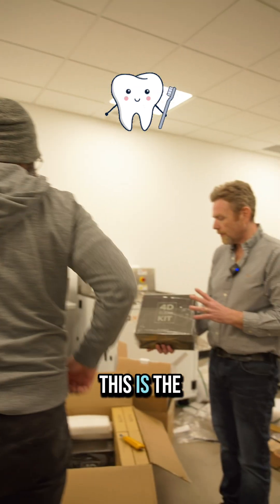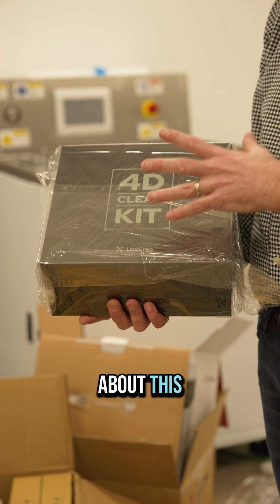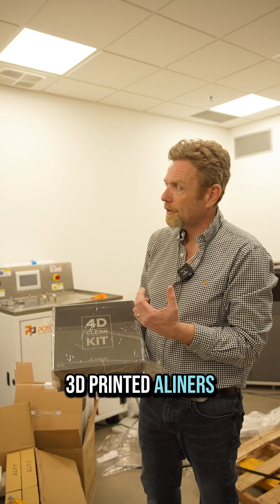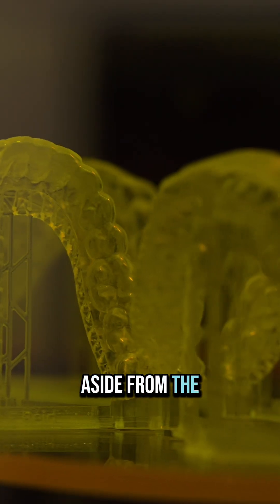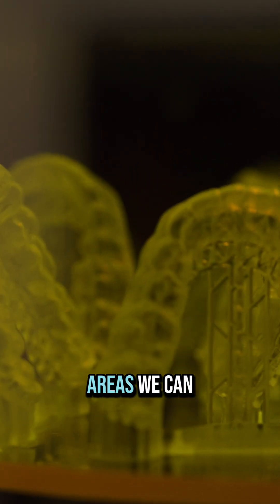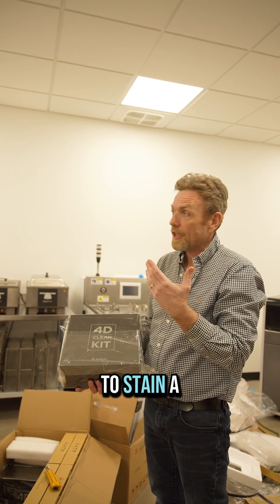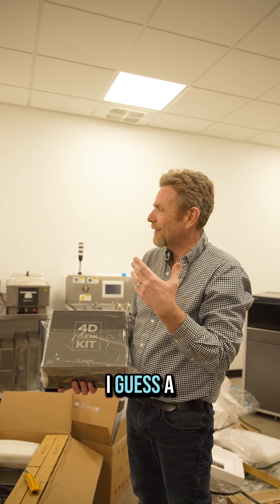This is an interesting thing here too. So this is the 4D clean kit. As I think we've talked about, one of the big differences with 3D printed aligners and thermoformed aligners, aside from the consistent thickness or strategically thick areas we can have, is that 3D printed aligners are a little bit more porous. What happens is they start to stain or discolor a little bit quicker.